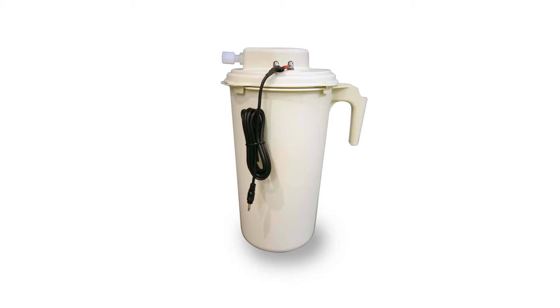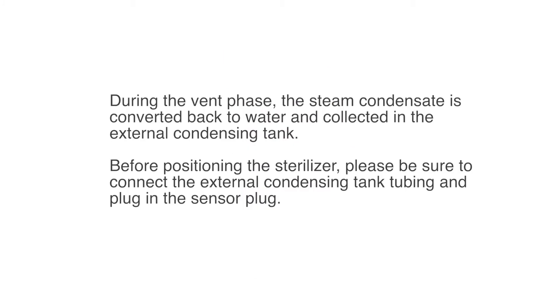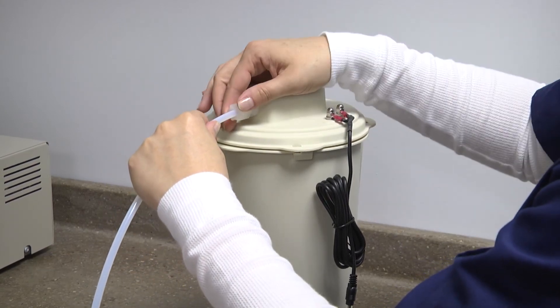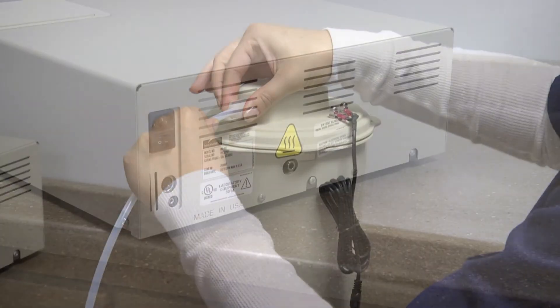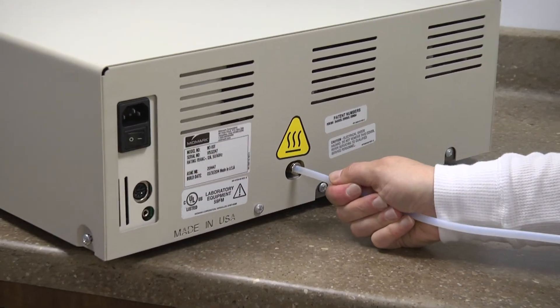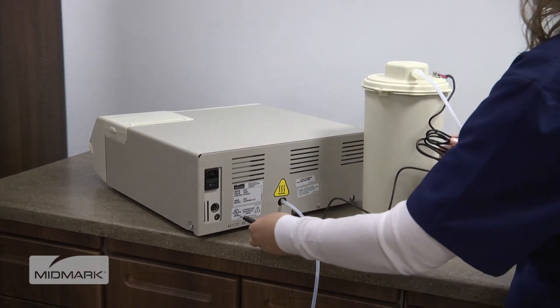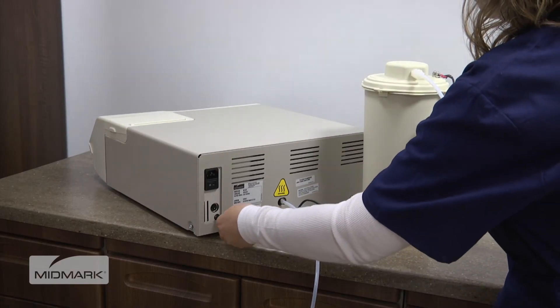The M3 Ultrafast uses an external condensing tank to collect used water. During the vent phase, the steam condensate is converted back to water and collected in the external condensing tank. Before positioning the sterilizer, please be sure to connect the external condensing tank tubing and plug in the sensor plug. To connect the condensing tank, push the tank tubing into the compression fitting on the lid and tighten the nut. Then connect the tubing to the back of the sterilizer by pressing it firmly into the push-connect fitting. Next, connect the sensor plug to the port on the back of the autoclave.